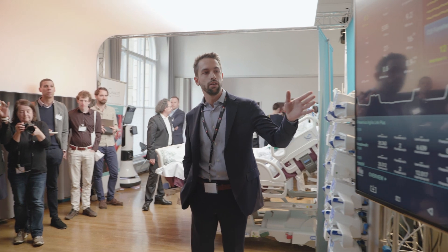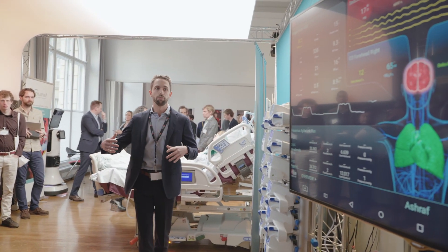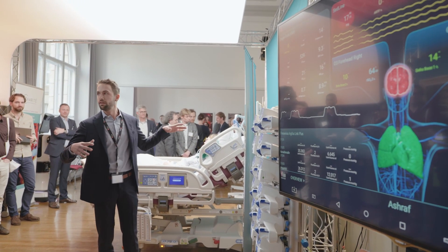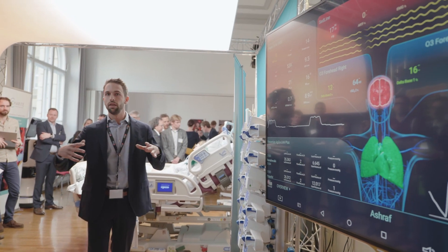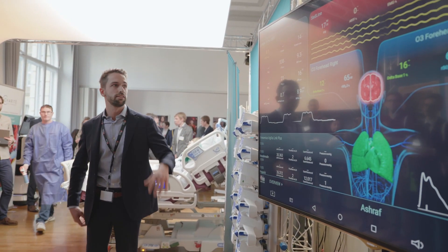The idea with this screen is to have a supplemental display of all the equipment that is in the room, and to display everything and gather all the data in the same place.